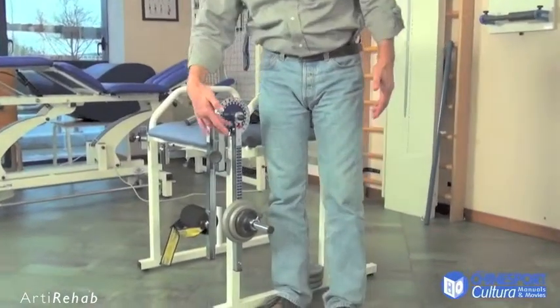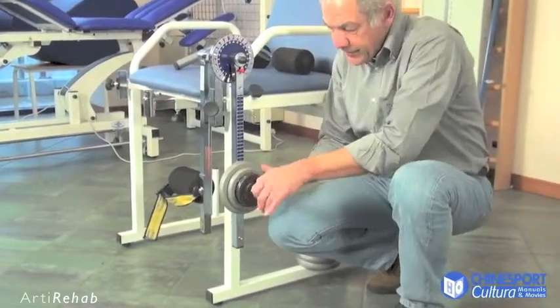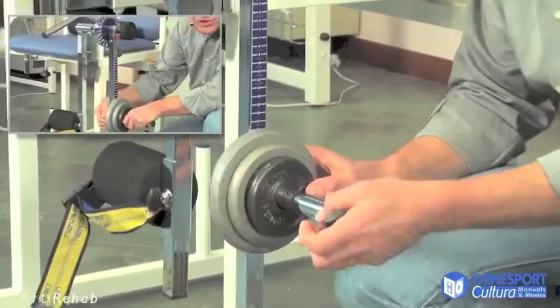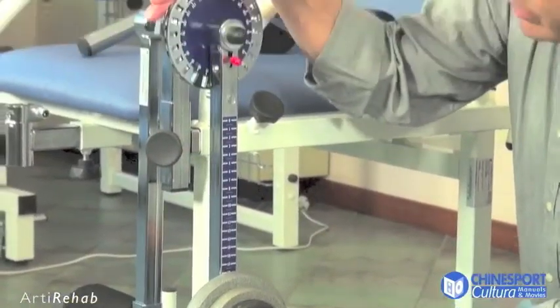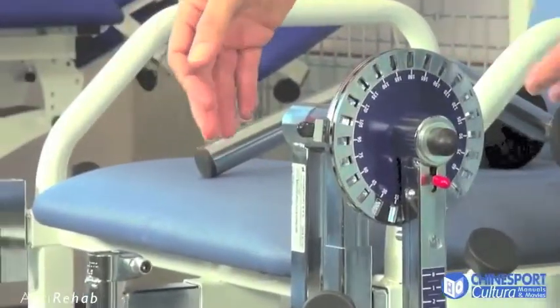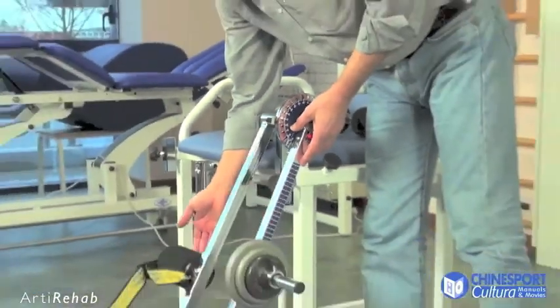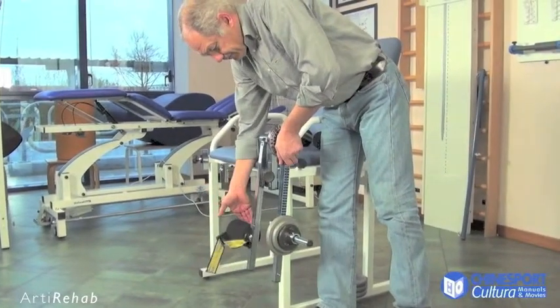The main characteristic of Arty Rehab is the moveable arm made up of three parts: a loading arm, which is used to position the load to be overcome during the exercise; a selector, which is used to select the starting and completion angles for the exercise itself; and a thrust arm, to which the patient applies their muscular strength.